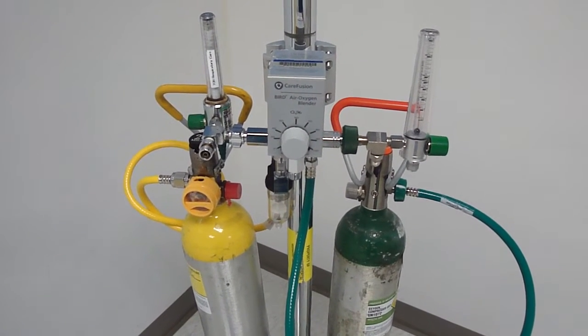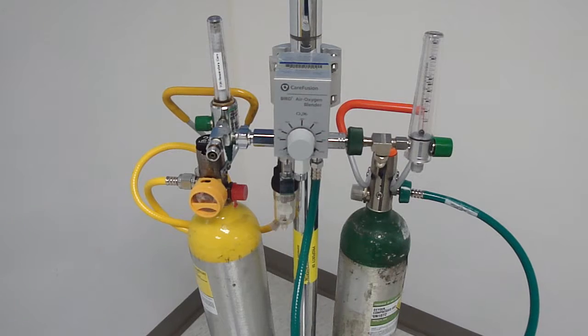If you're going to make a transport and you need blended gas, you're going to need to use a blender.